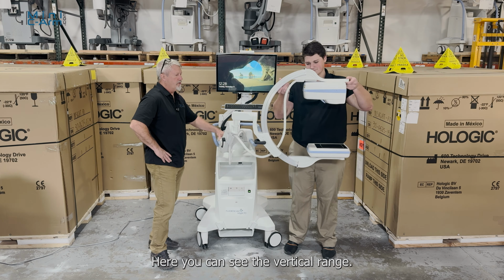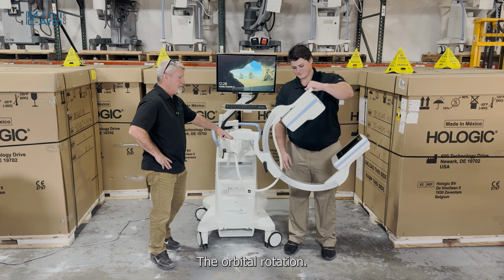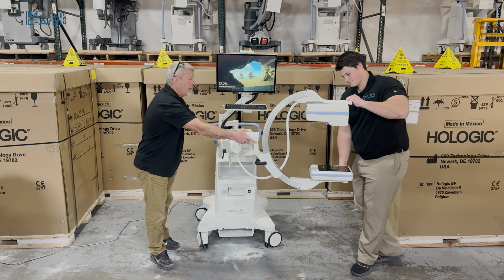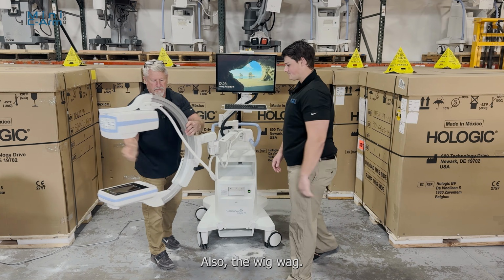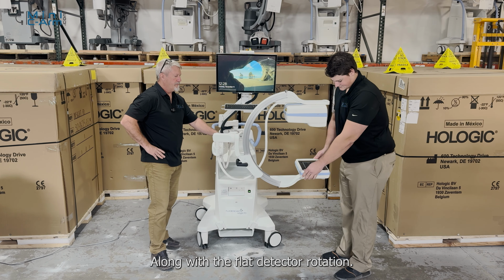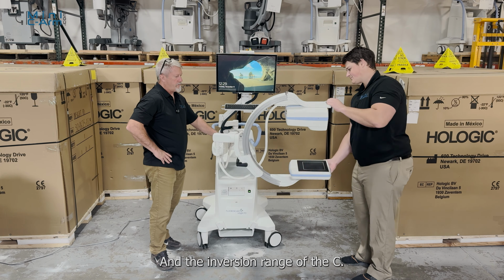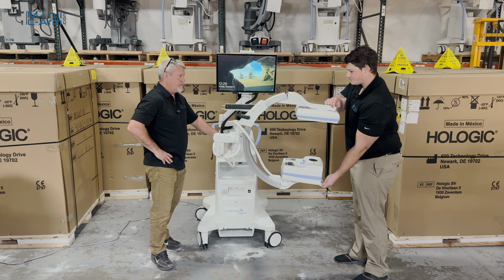Here you can see the vertical range, the orbital rotation, also the wig-wag, along with the flat detector rotation, and the inversion range of the C.